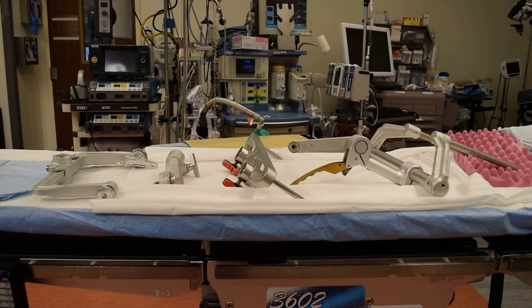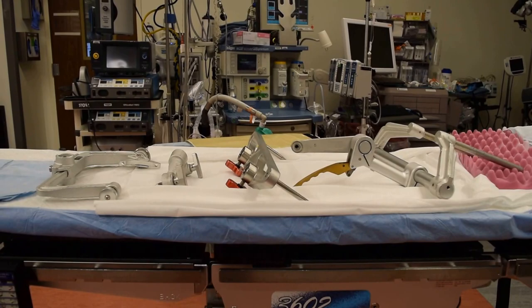There are four parts that we need to grab from the neurosurgery annex room before we do a craniotomy. Typically the patient is going to come into the OR, they're going to be intubated, and once we get the OK from anesthesia, we're going to proceed with positioning the head. These are the four parts that we need to recognize today.